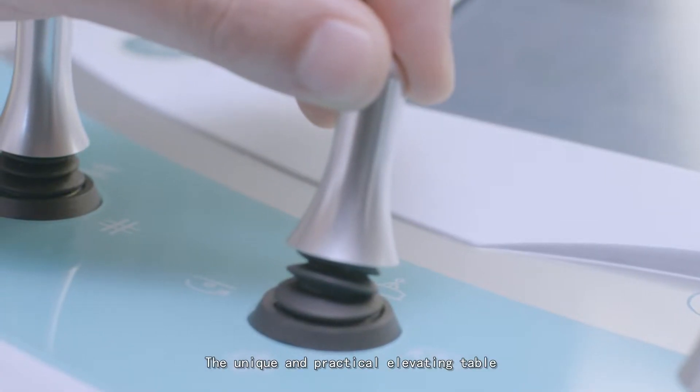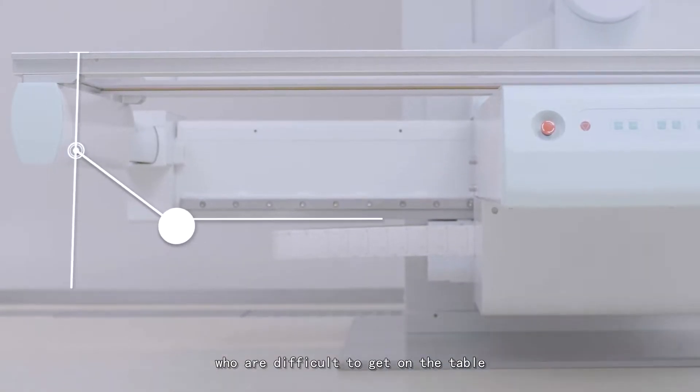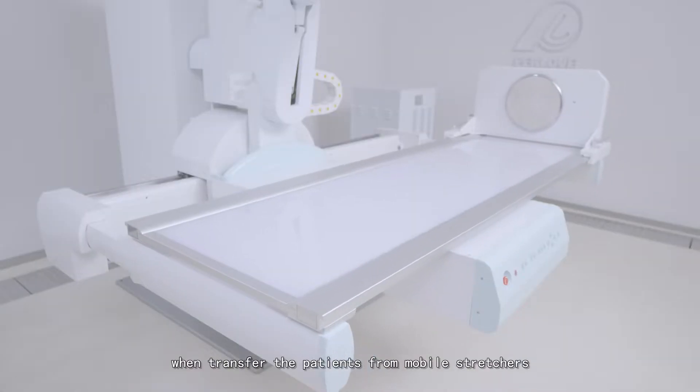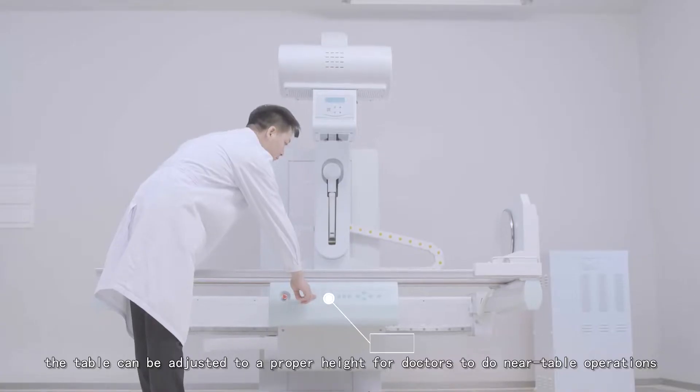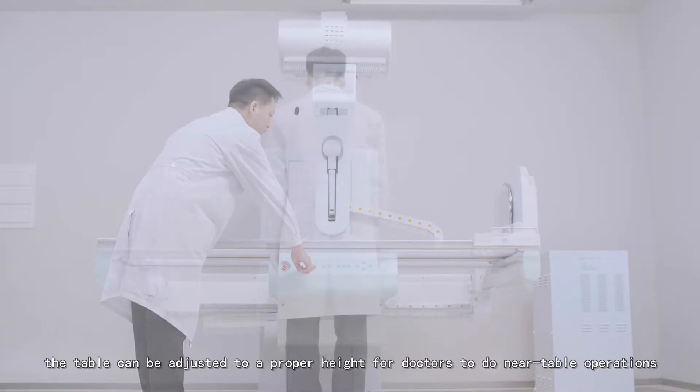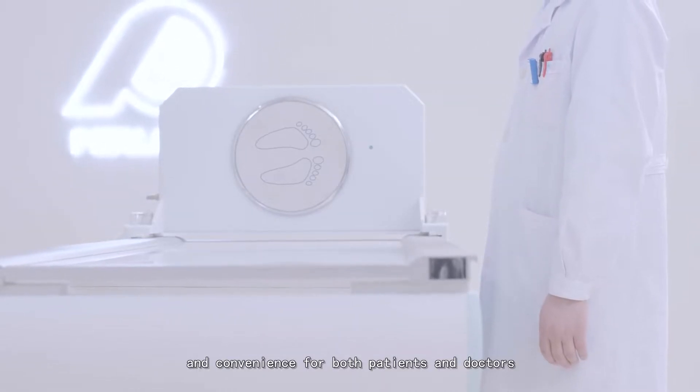The unique elevating table provides convenience for patients who have difficulty getting on the table and avoids secondary injuries when transferring patients from mobile stretchers. The table can be adjusted to proper height for doctors to perform near-table operations, bringing comfort and convenience for both patients and doctors.